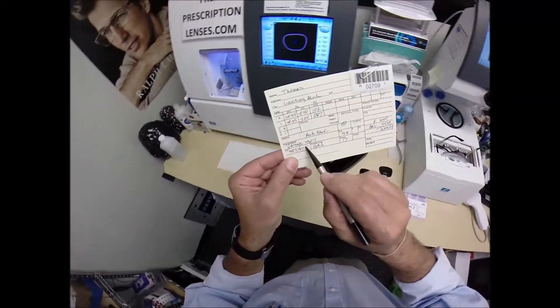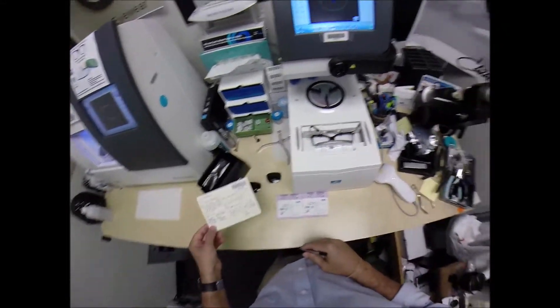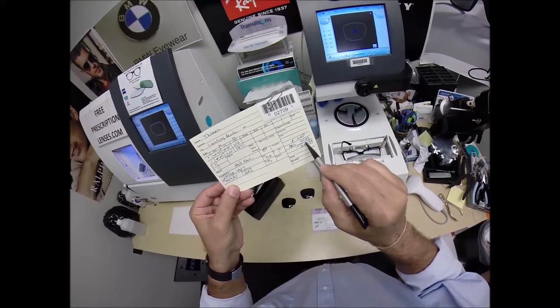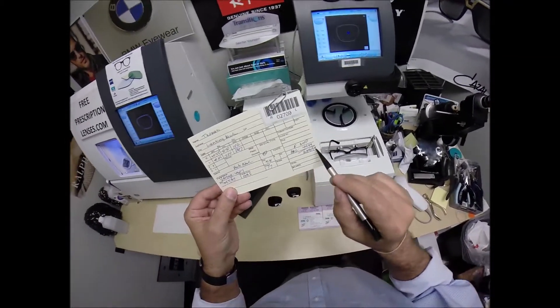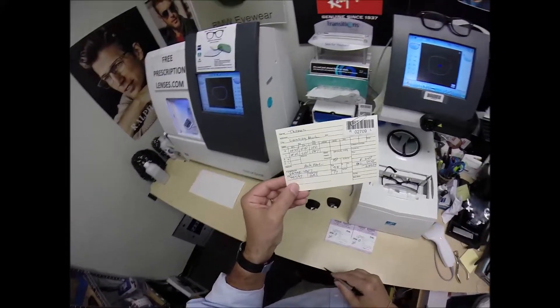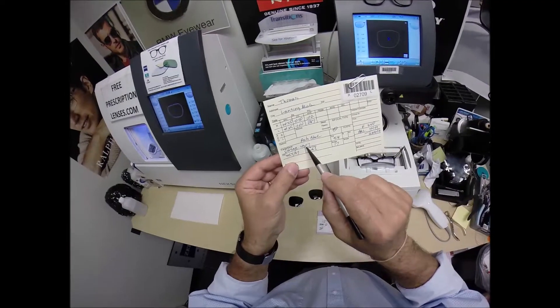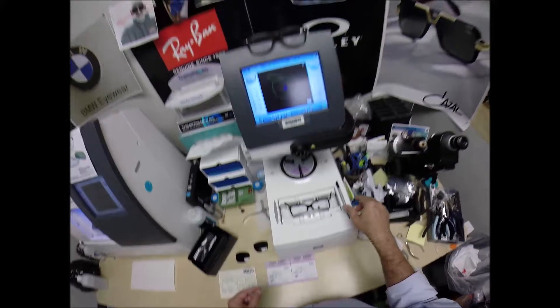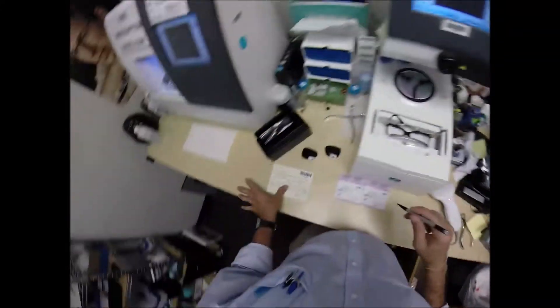Thomas emailed me and says, Can you get me the Versace 4307? I said, Yes, I can. In fact, it sells for $240, and with the anti-glare coating, my house anti-glare adds $44.99 for a total of $289.99. So I don't have this frame on the website yet. Hopefully, Jigsaw will add this. But I'm always glad to talk to you.